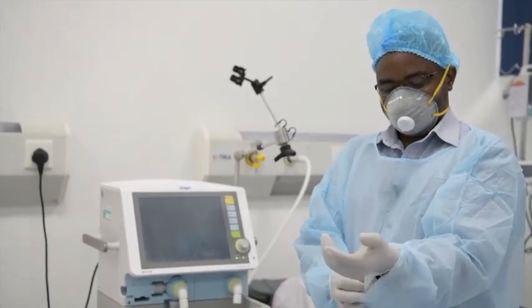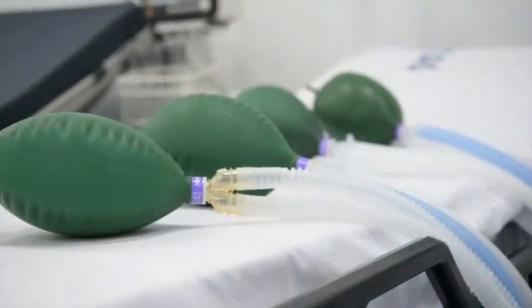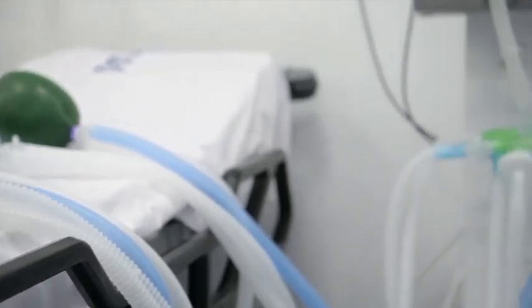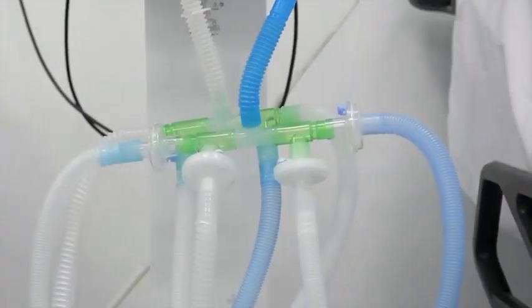The next thing now, I'm going to show you how you can reset your ventilator machine and be able to ventilate more than one patient.